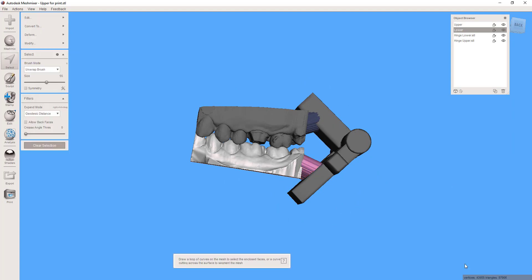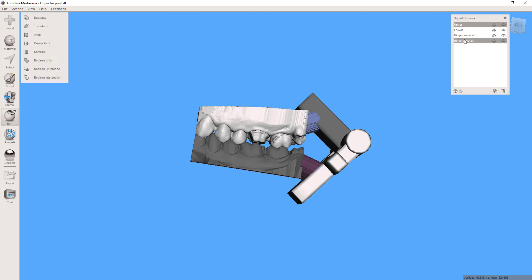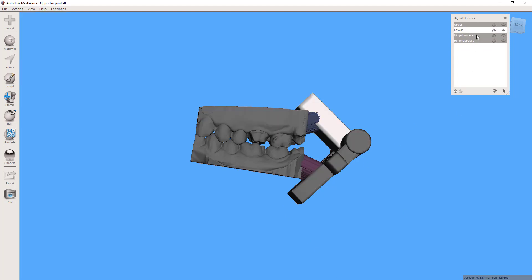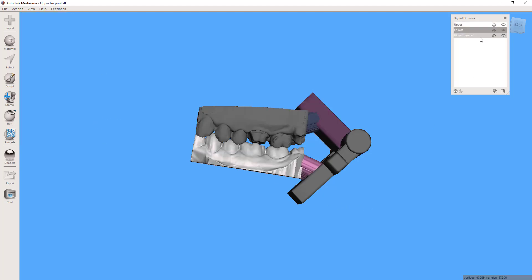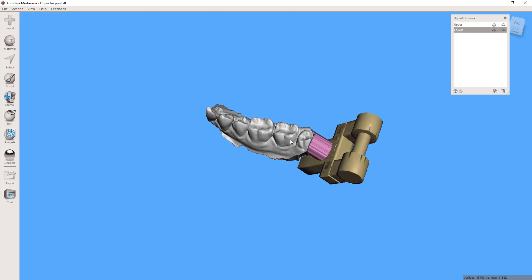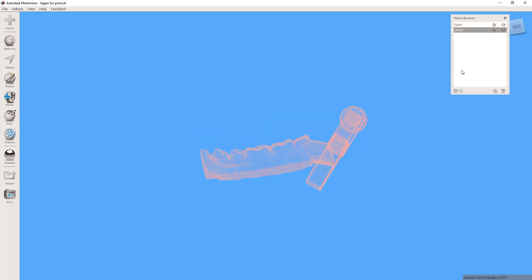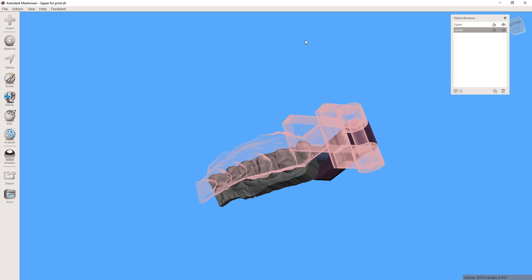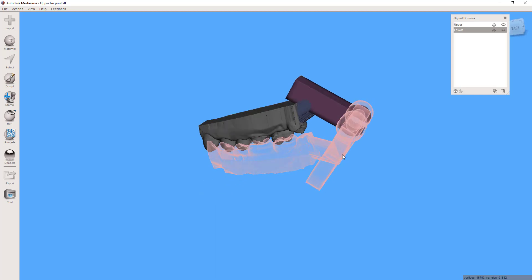Now while they are touching one another they're not the same object just yet, so what we need to do is now go up here, select the upper part of this hinge and the upper part. Oops I've got that actually spun around but that's okay, it's the same principle. Select the parts on both the upper side and then combine, and then come back, same process, combine. And now you have independent upper and lower objects and everything should be good to go.